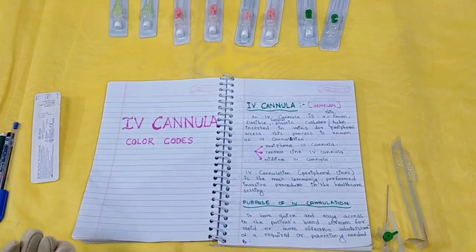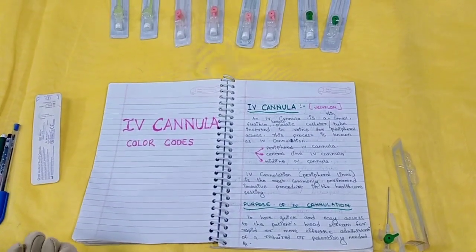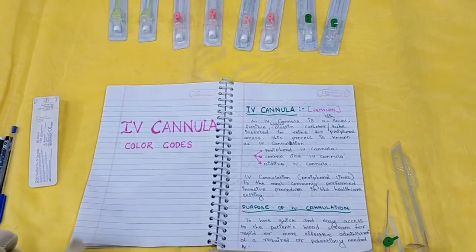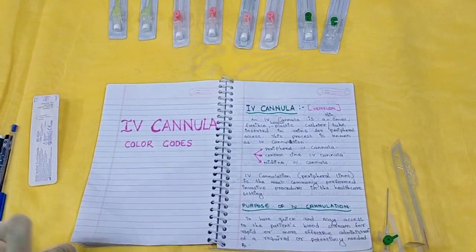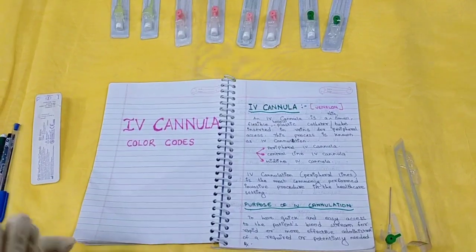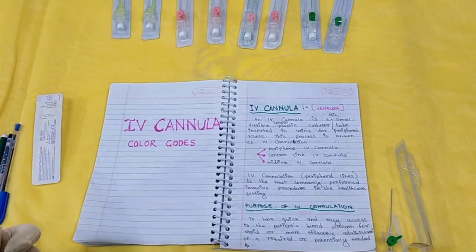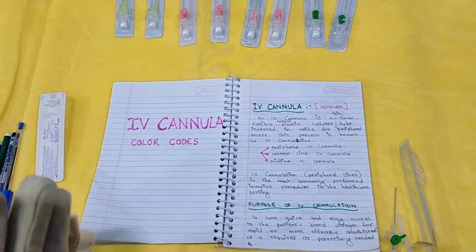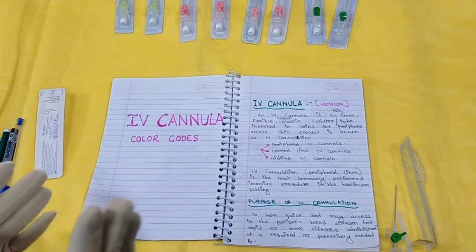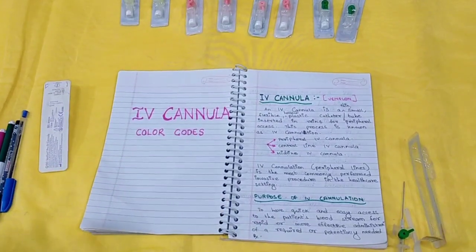Today in this video we are going to deal with IV cannula. In this video we will know what is an IV cannula, what are the different types and models of IV cannula, what is the purpose of IV cannulation, the indications of IV cannulation, and the color codes — what the different colors are and for what they are used.